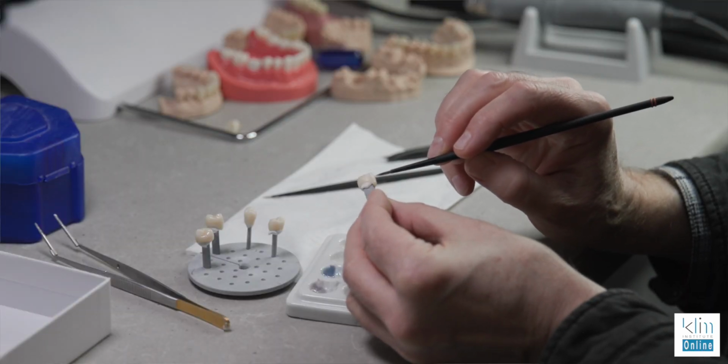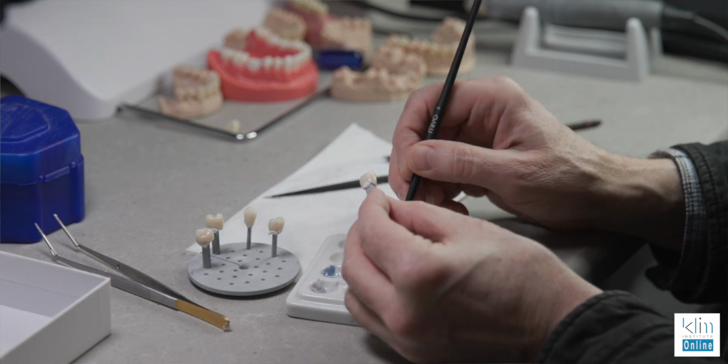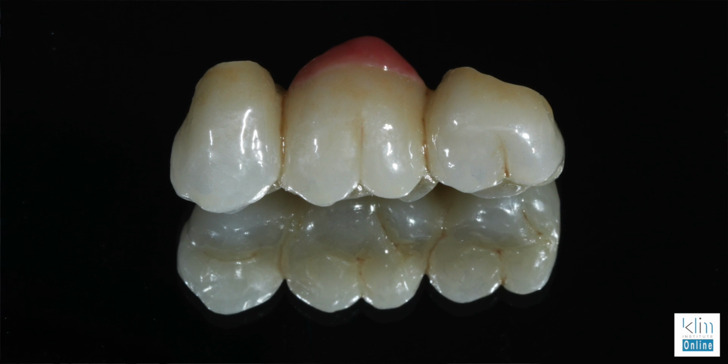What I'm teaching classes with now is even doctors that are getting restorations back from the lab. You can use MiYO Esthetic to add characterization, to fine-tune a restoration without sending it back to the lab, and deliver that in the same appointment. So that's the beauty of this exercise.